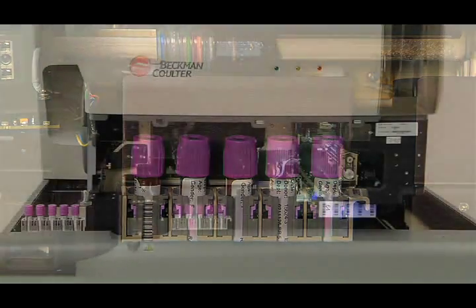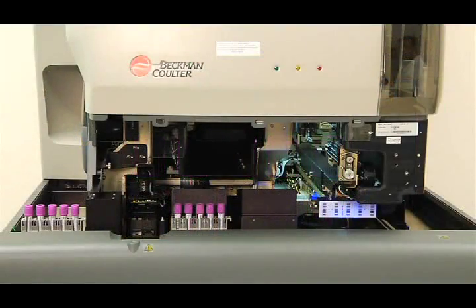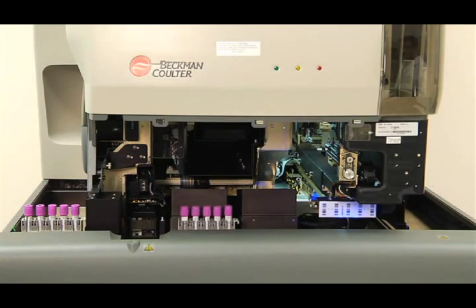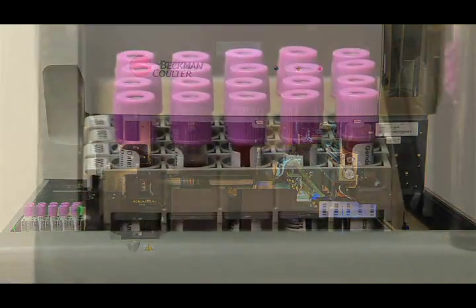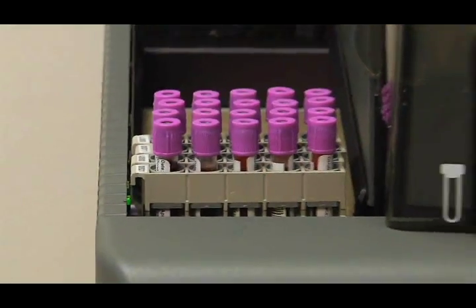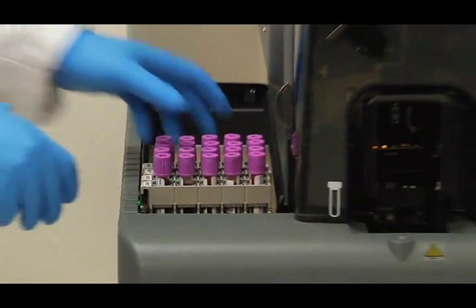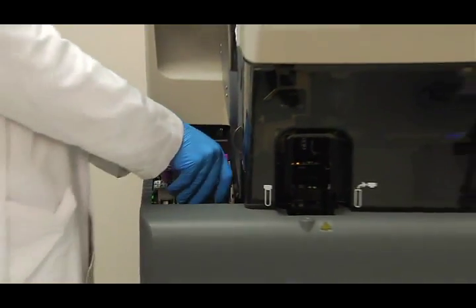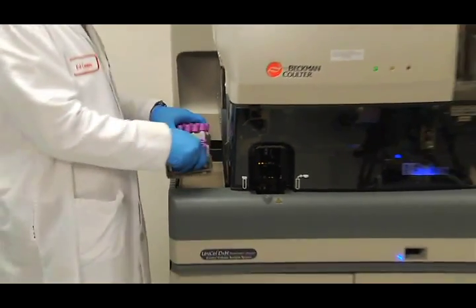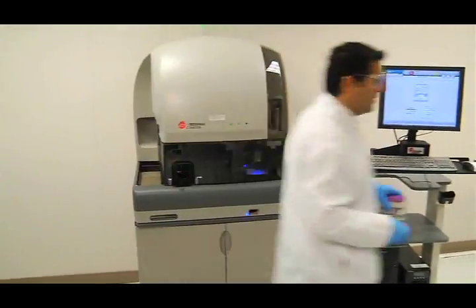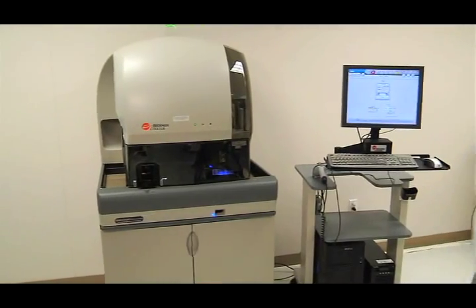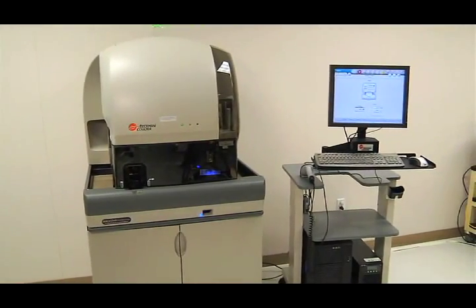The patient's specimen is then transported to the output buffer chamber, where it will wait for removal or transport to another module or storage area. The output buffer chamber also has a 20 cassette holding capacity.